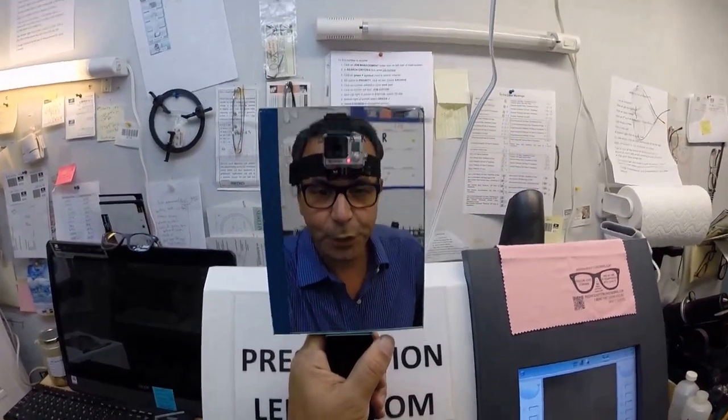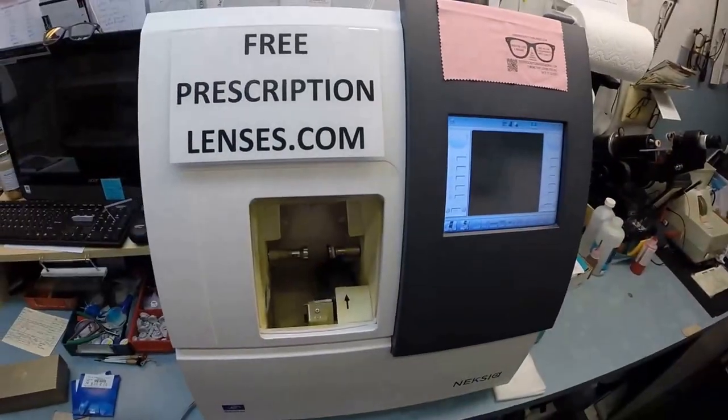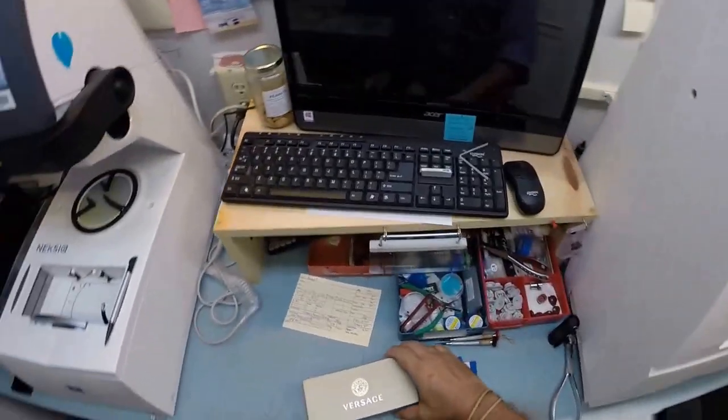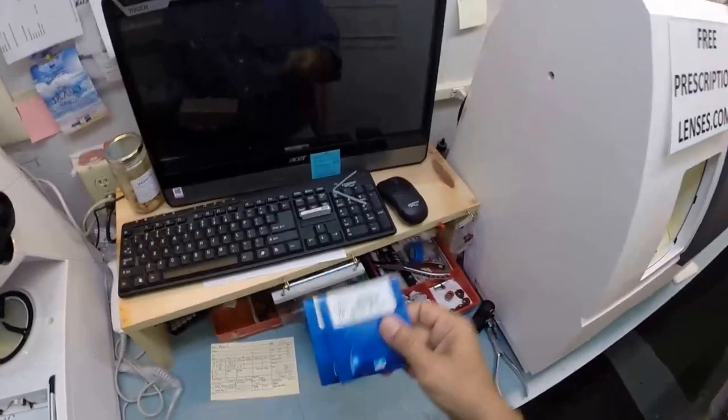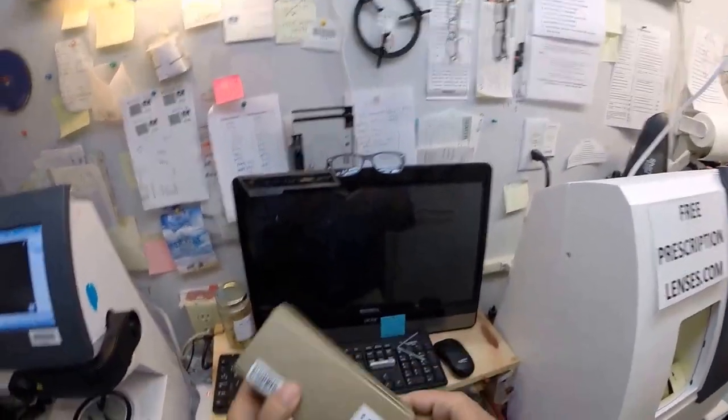Hello Angel in the city of Angels, Los Angeles, California. How did you get them to name the city after you? It's Matthew with freeprescriptionlenses.com and with the help of my GoPro camera, I'm going to show you how I cut prescription lenses with Transitions Gray for your Versace.